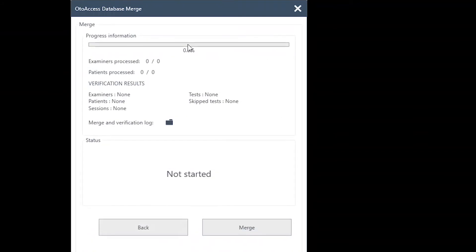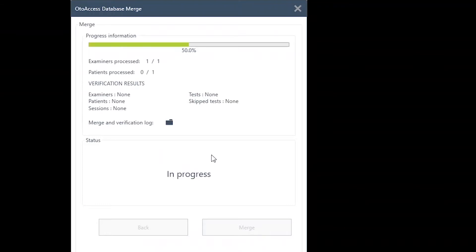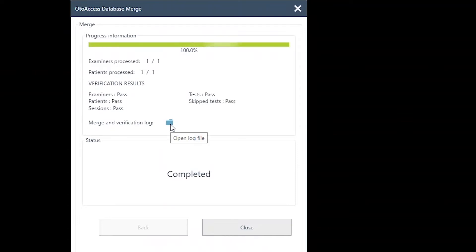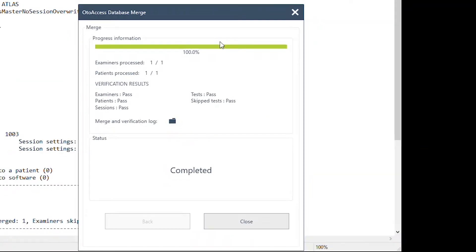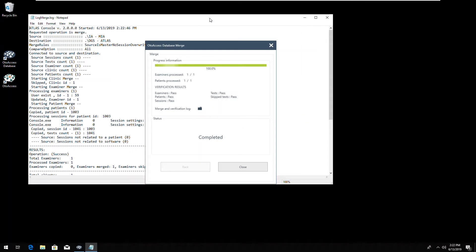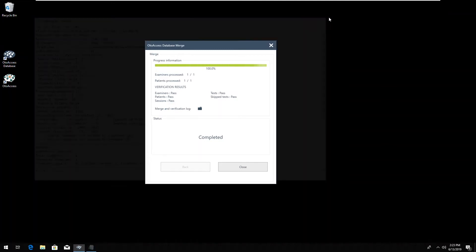On the merge view, you just press merge, and it will automatically take in your patients from the old version. You can follow the process here in the picture, but you can also open this and see a log of what was going on and if anything failed.